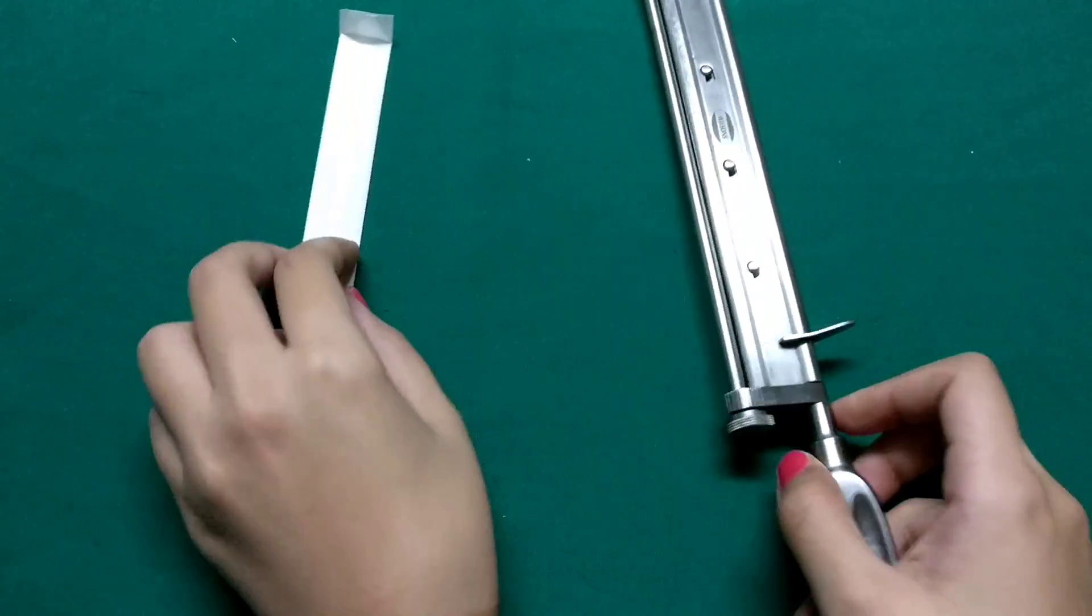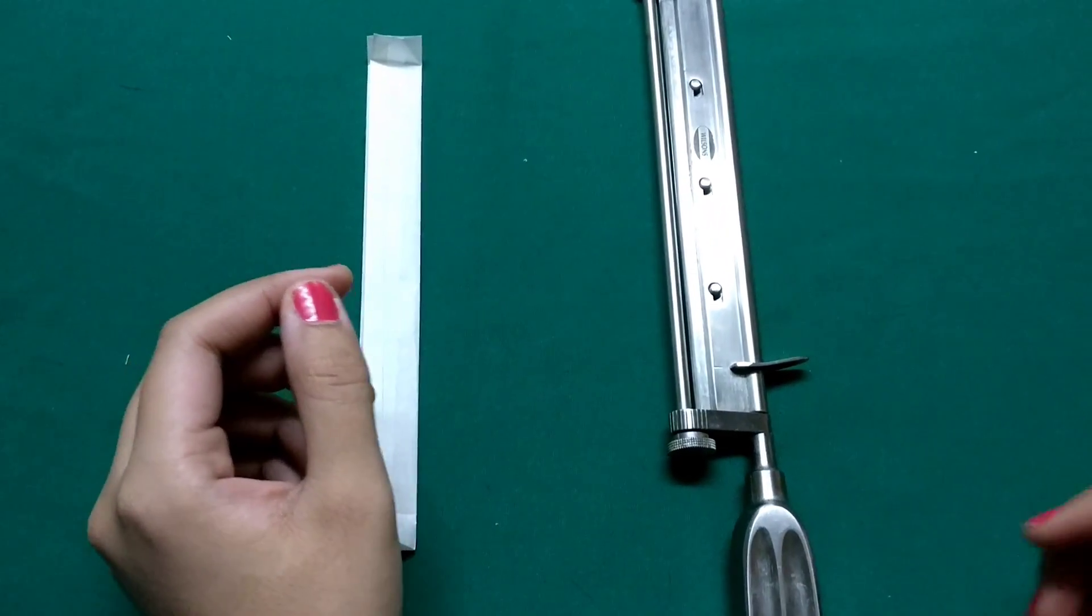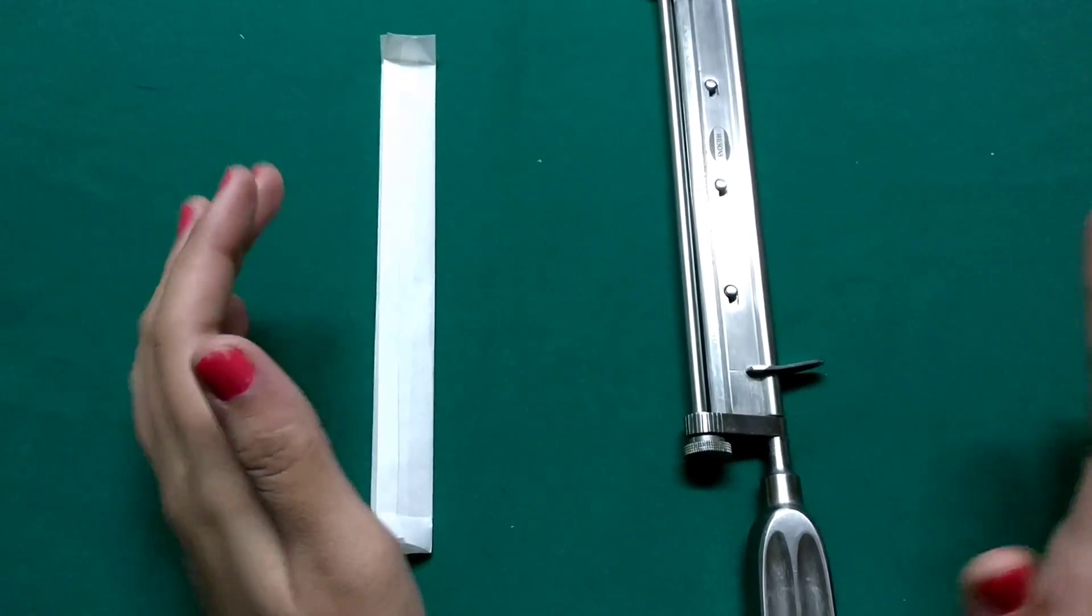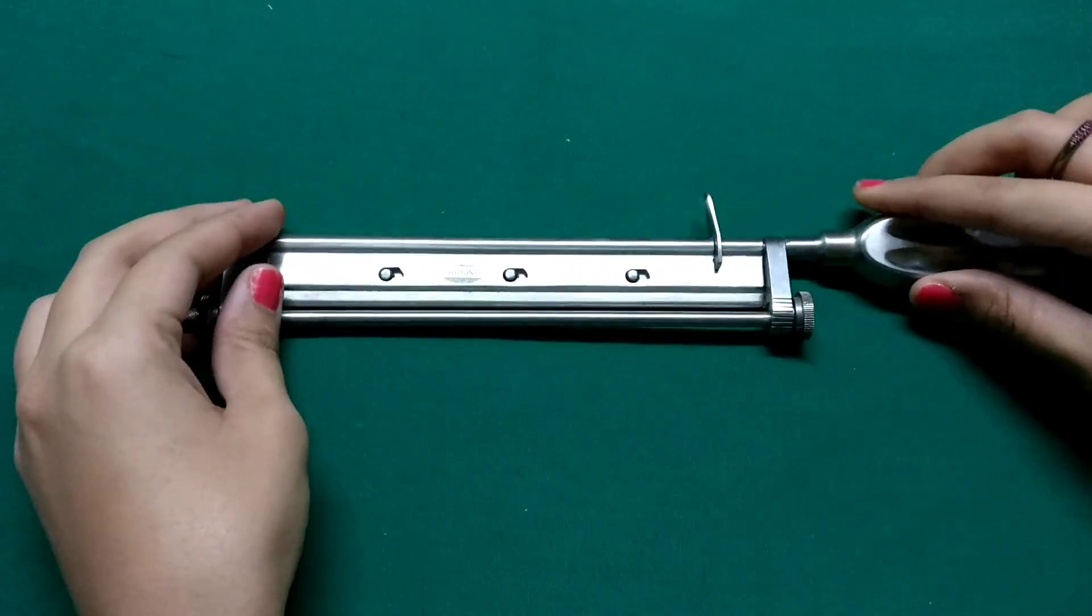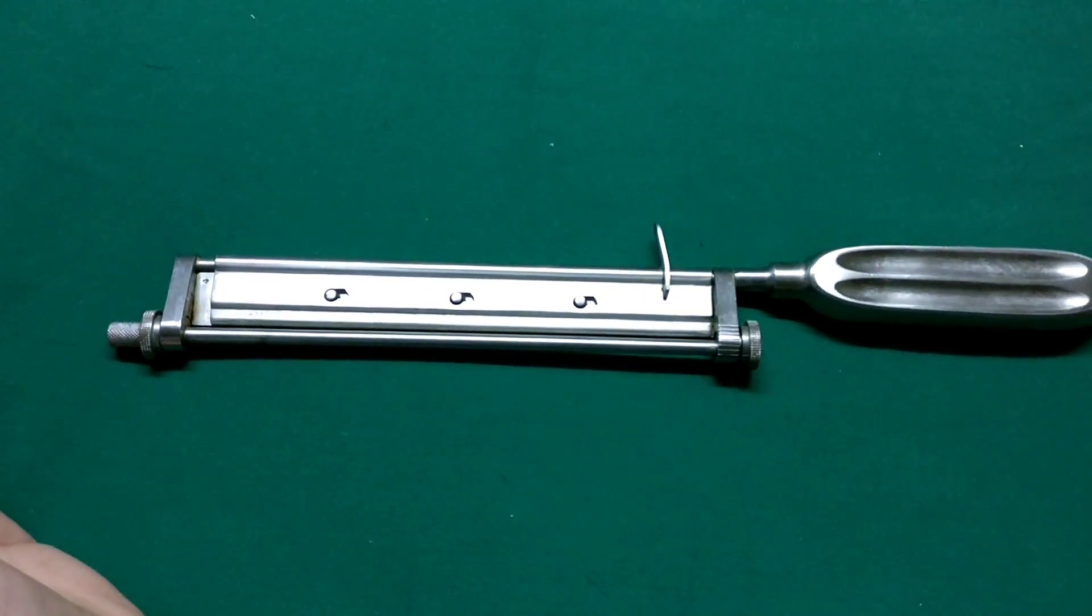Hi, so today I am going to show you a skin grafting handle which is the most basic instrument for a plastic surgeon. It's as basic as a scalpel is for a general surgeon. This is a skin grafting handle which is used everywhere commonly.